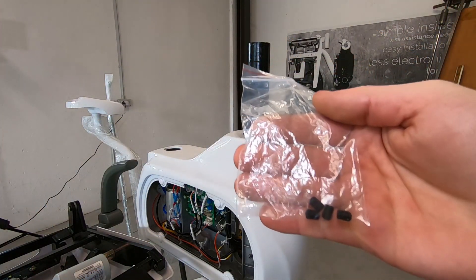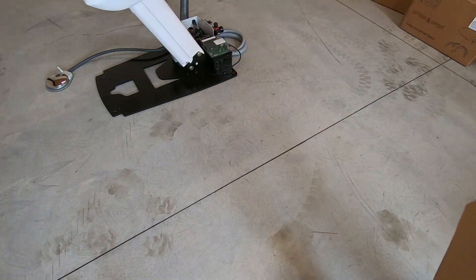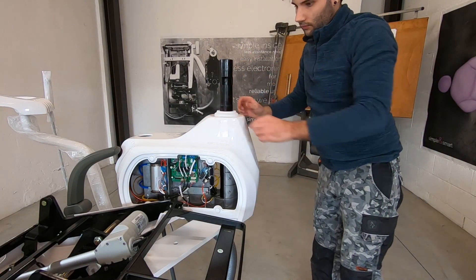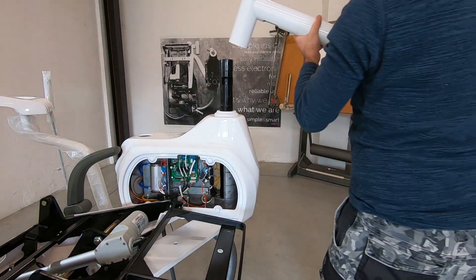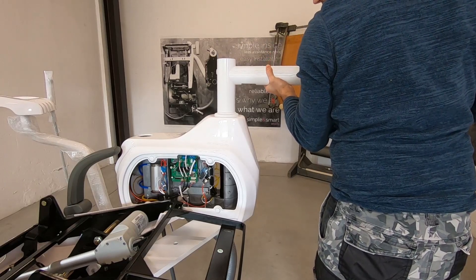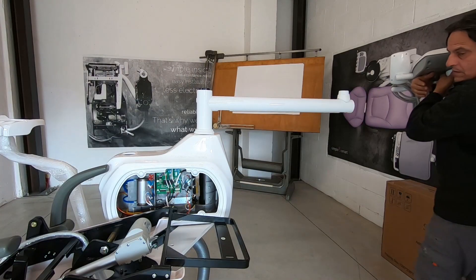These screws will be used later to fix the lamp pole. Take the silicone to the doctor tray arm and put it on the water unit. Mount the first arm and the doctor tray.